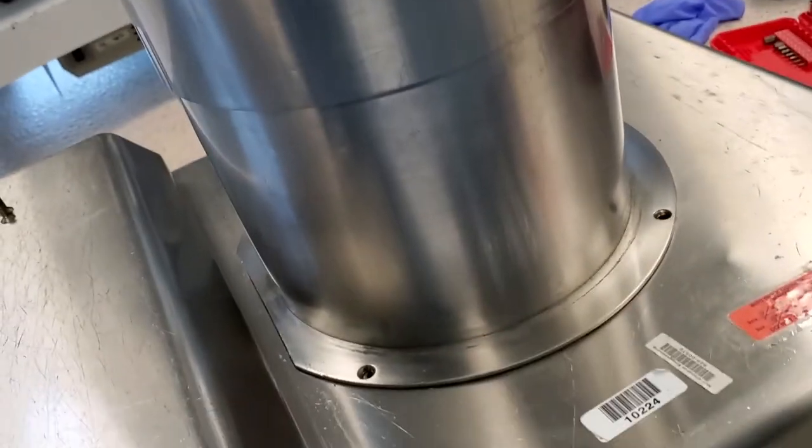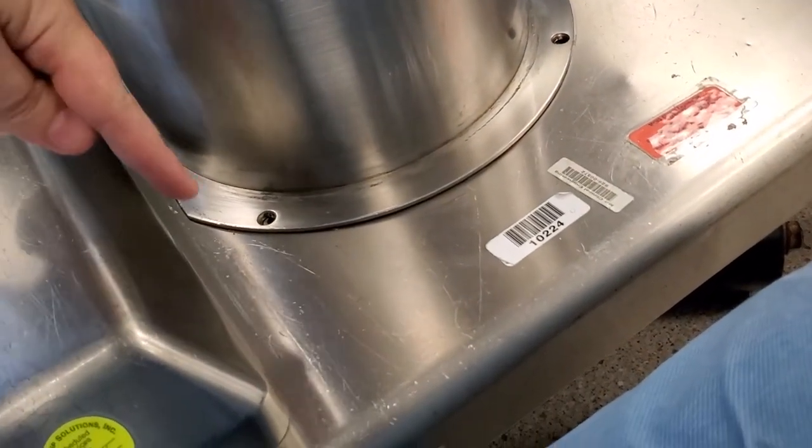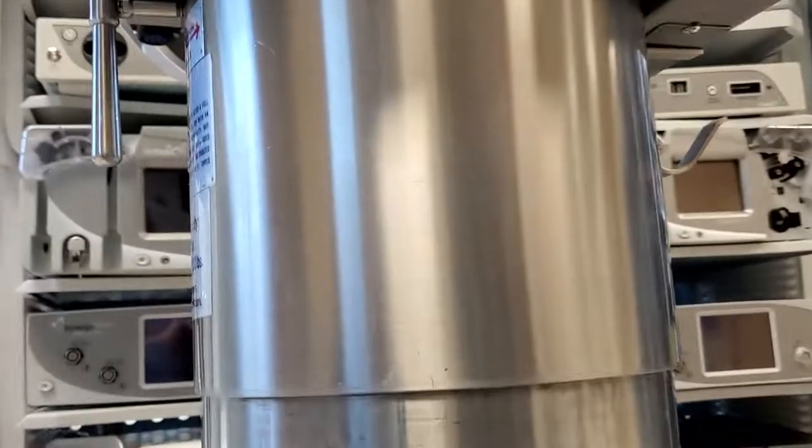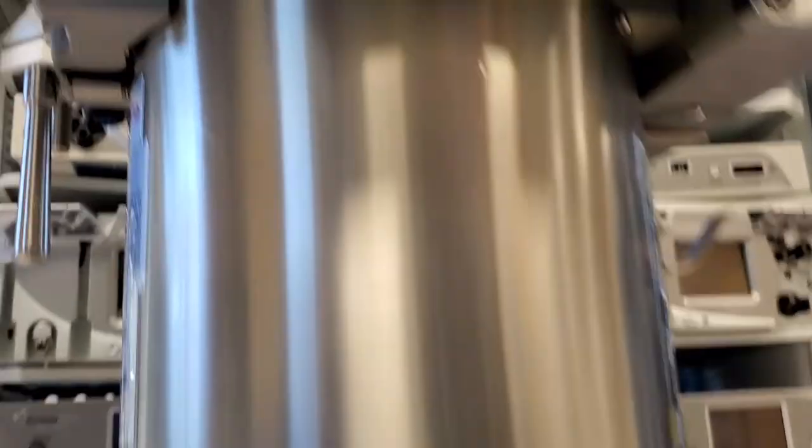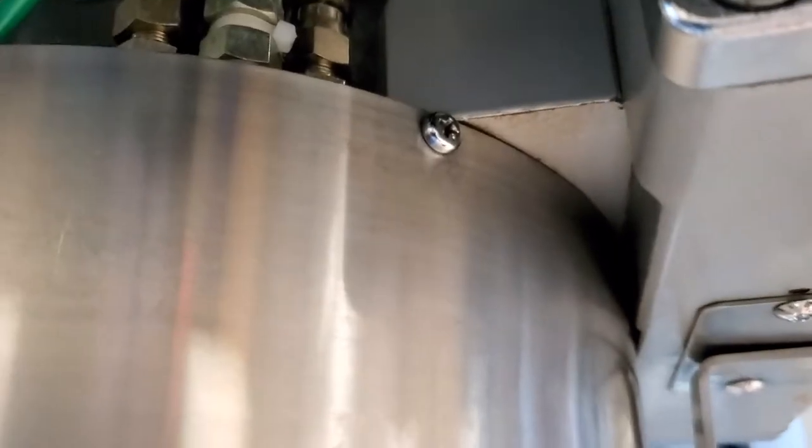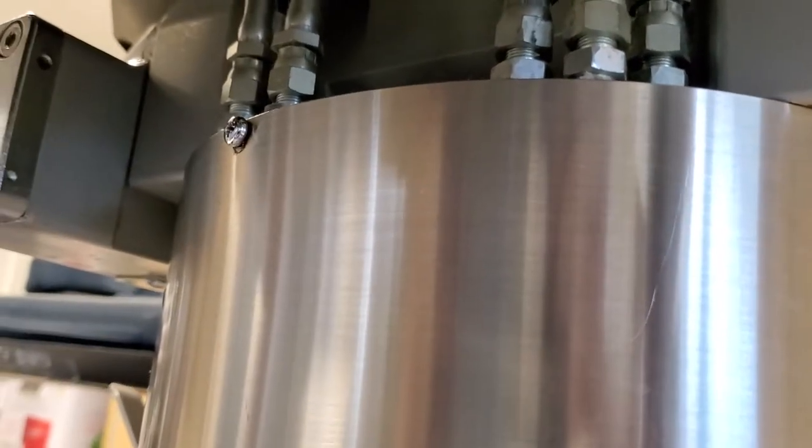Alright, once it's all tightened down, the collar goes back into its place. Notice the flat spot. Always have the flat spot towards the cover. Make sure that your covers go down nice and smooth. And there are a couple Phillips screws up at the top. Make sure it's tight just in case you shook it loose. I've got one up here. That one is a little bit loose.